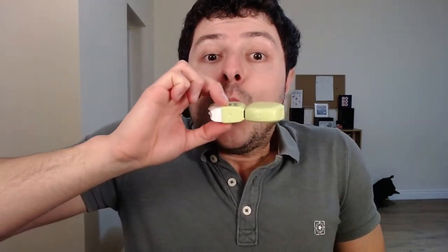When you're ready to use it, you just close this — it clicks closed and you are ready to use it. Remember it's a dry powder inhaler, so you have to inhale that powder. You need to do a forceful breath in. Take the air out of your lungs so you have room to breathe in and take it deep inside your lungs. Take the air out and then a forceful deep breath in. Hold your breath for 10 seconds, as long as you can, then slowly breathe out. Hold as long as you can, slowly release the air — that helps the dust settle in your lungs.